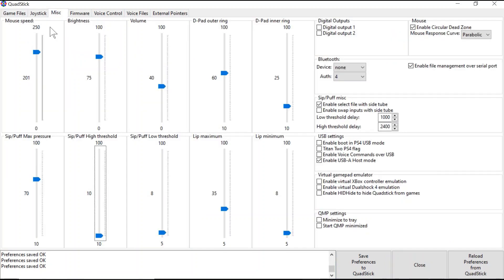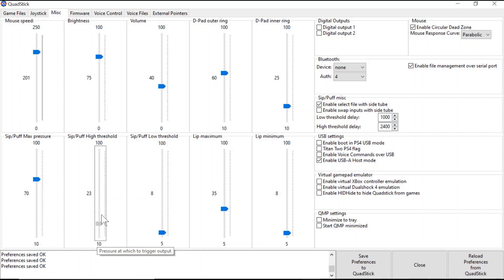In the Miscellaneous tab, there are a lot of different settings you can change. I'm not going to go over all of these right now, as some are more advanced and we'll cover them in later videos. I want to focus mostly on the Sip and Puff threshold. This might be in a different section of your Quadstick Manager program depending on which version you have, but the Sip and Puff threshold adjusts how much respiratory strength is needed to activate the specific Sip and Puffs on the Quadstick.